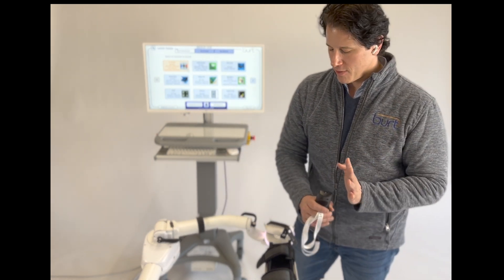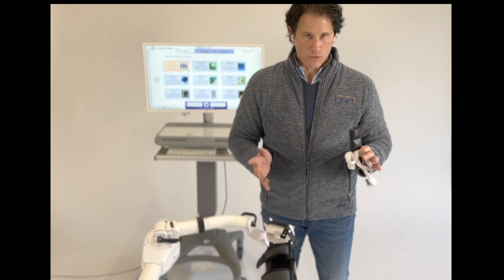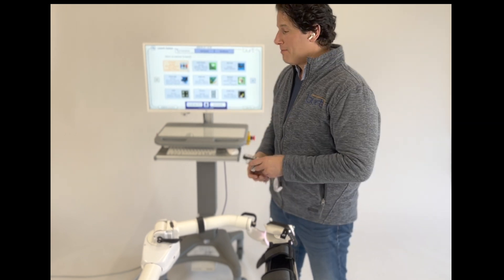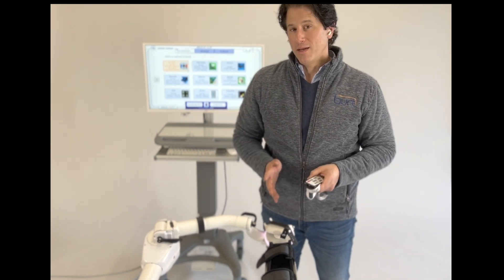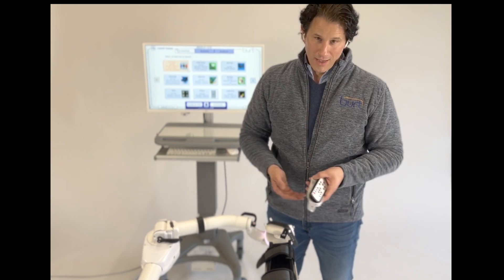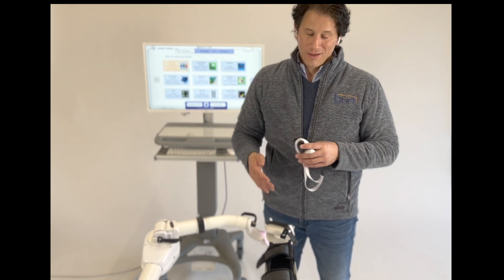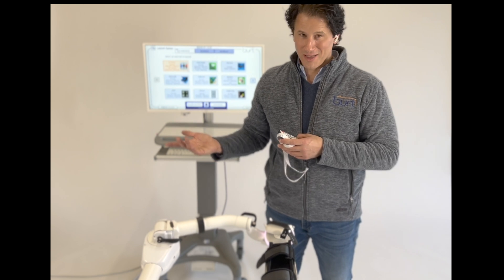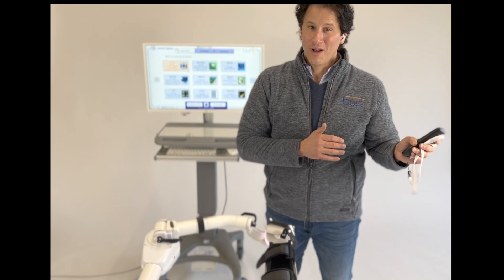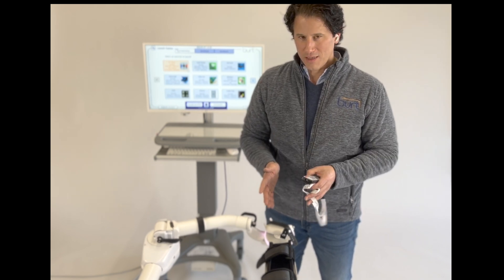What I want you to think about when it comes to these demos is it's easy to use, easy to get patients in and out. Think about all those patients that might benefit — stroke patients for sure, where you can create a small space and have BERT bring them to places they can't go on their own. I like to compare this to a BMW M5: you can drive it to the grocery store, but you can also take it on a racetrack. You can read about it all day, but the only way you'll ever understand it is by sitting in the thing and driving it.